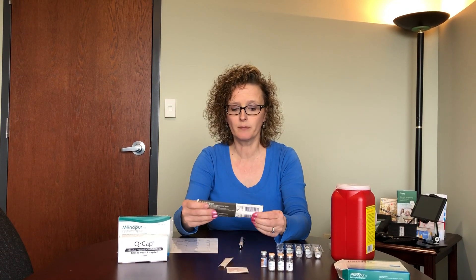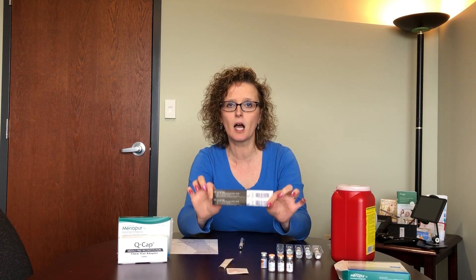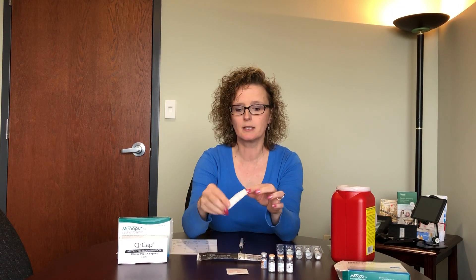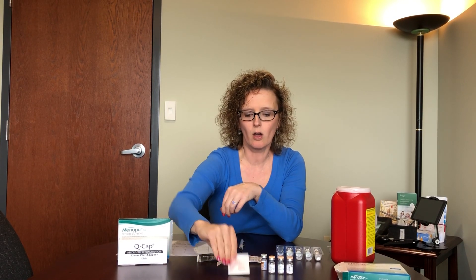You're going to need one vial of saline, because that's all we need to mix. You're going to need your mixing needle — and before you open it, I'll tell you it is a long, scary needle, but it is not going to enter your body. We use this for mixing purposes only. You'll also need the smaller needle, which is the one we actually do the injection with — nice and tiny so it won't hurt so bad. You will need an alcohol prep pad every time. You can use multiple as you pop the caps from your Menopur vials; it's always good to wipe everything down to keep everything sterile.